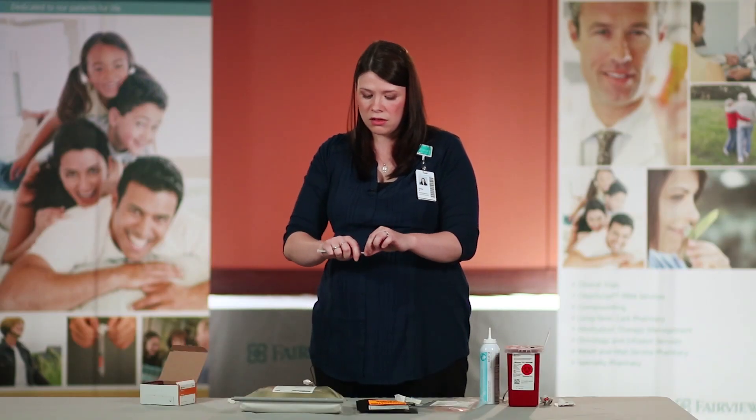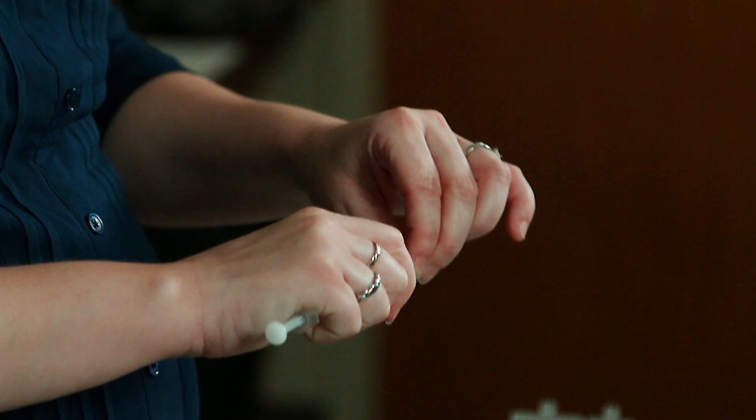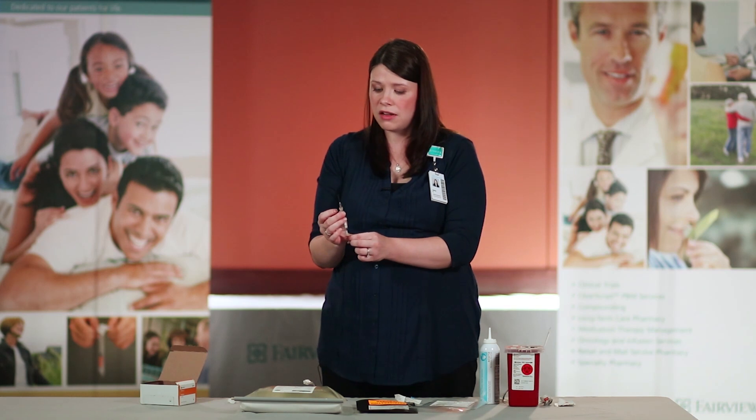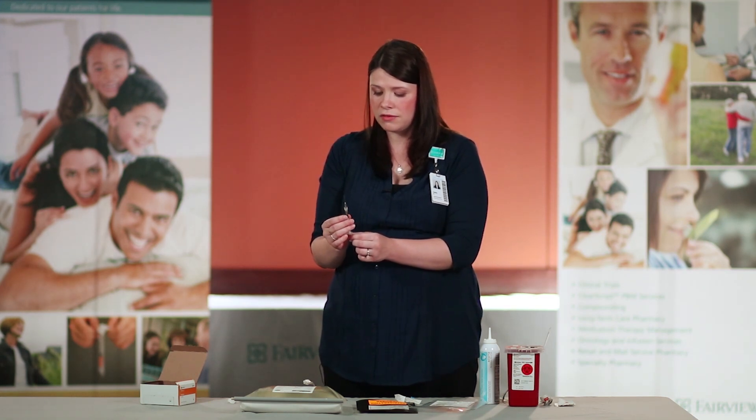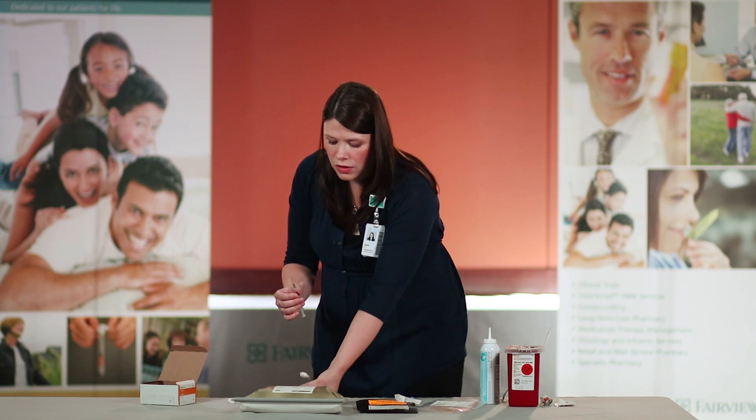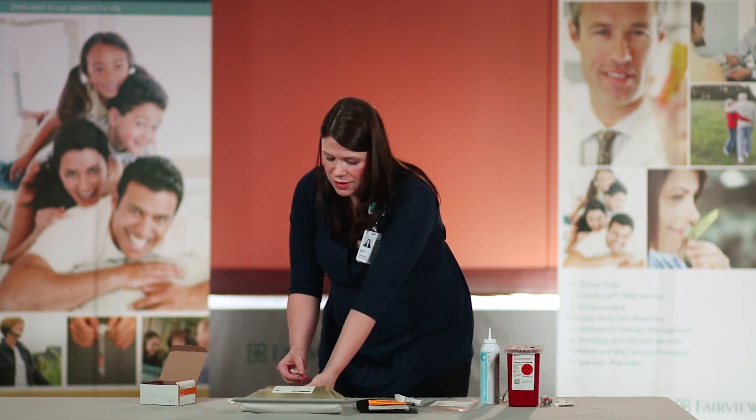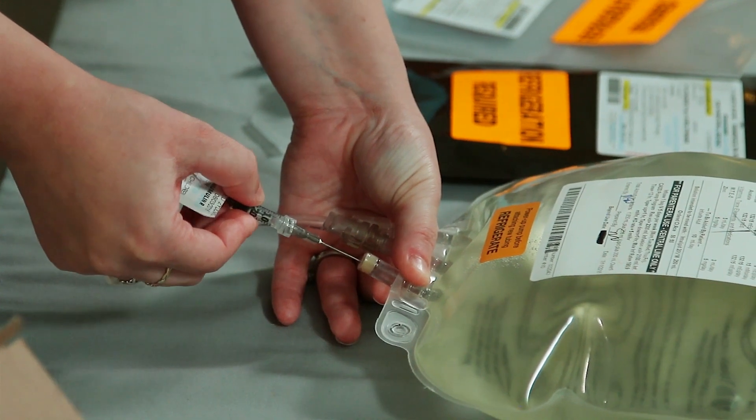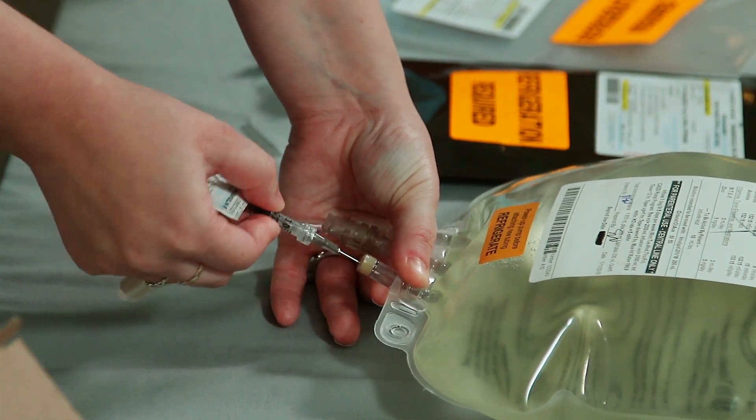Remove the needle by pulling straight off. Once the cap is off the needle, ensure that you do not touch the tip of the needle. Hold the port of your TPN and place the needle in the center of the port and push in.